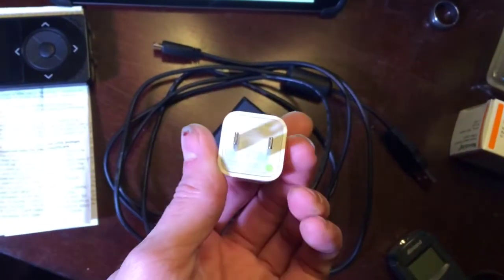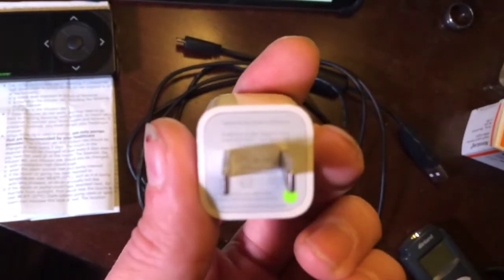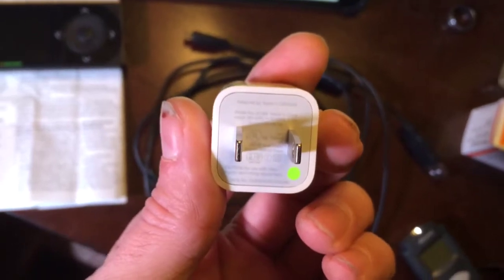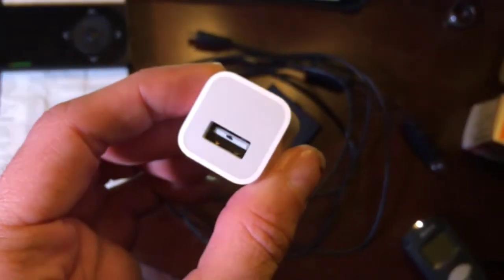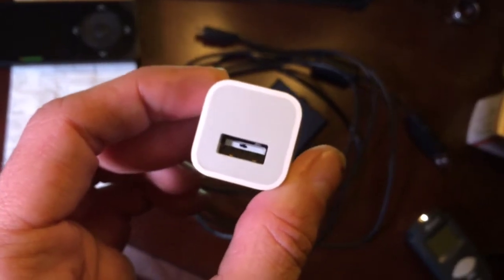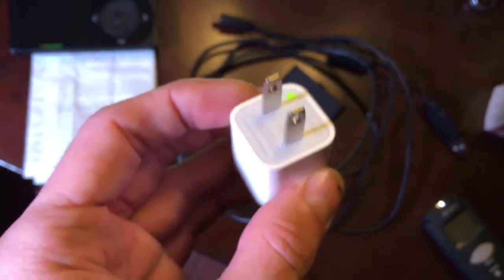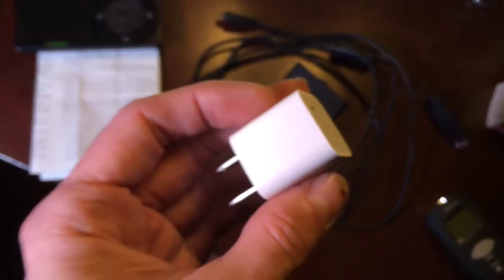When I say iPhone charger, I mean the one with the green dot — the one that says 'designed by Apple in California' — not the $4 one you picked up at the local mini mart, which has been known to suspiciously electrocute people in other countries. I wouldn't trust any expensive piece of equipment to a very cheap charger. This one I definitely trust.